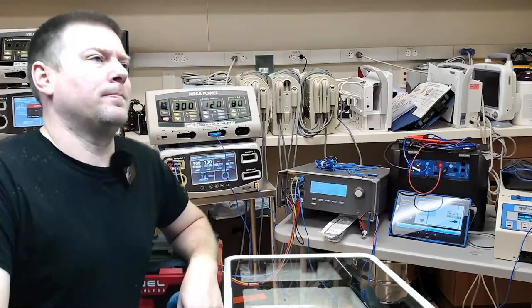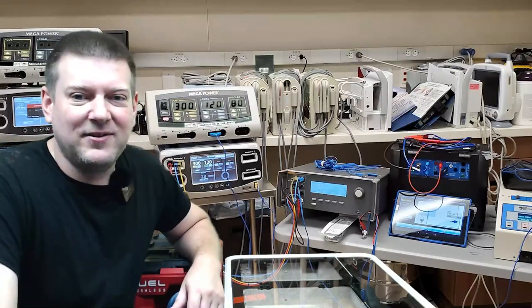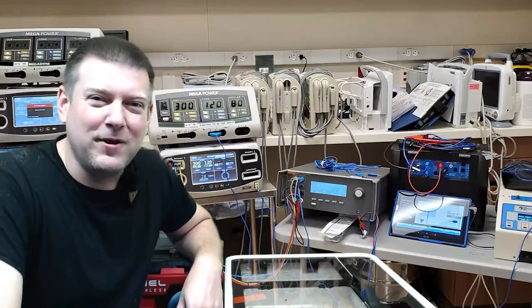Why would you need a vacuum? Well, how many people are not doing the correct PMs out there? It's quite a few, isn't it?